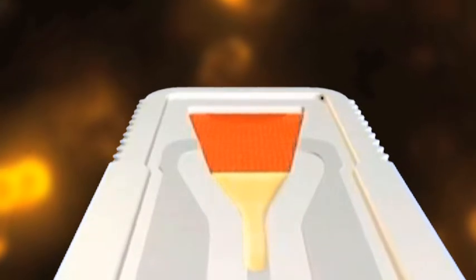The microcapillary surfaces on the device direct the flow of fluorescent analytes down the assay lane to assay zones. These zones contain antibodies designed to capture the fluorescent analytes for detection by the meter. The sample continues down the assay lane as each assay zone captures a specific fluorescent analyte.